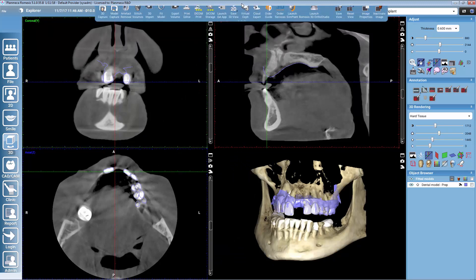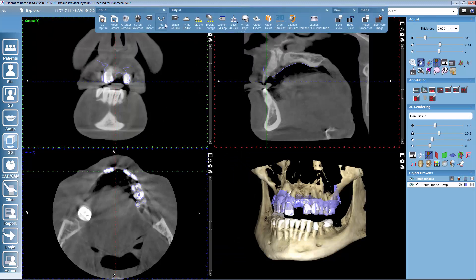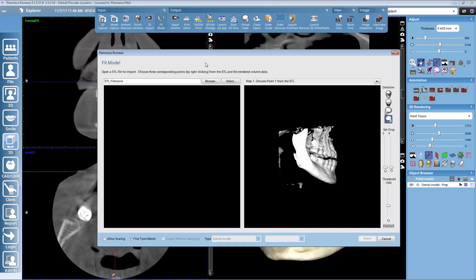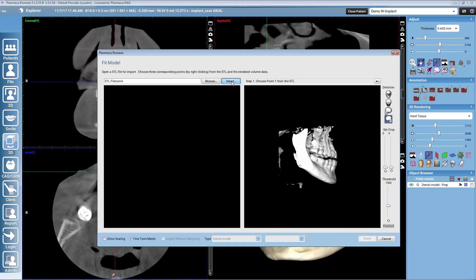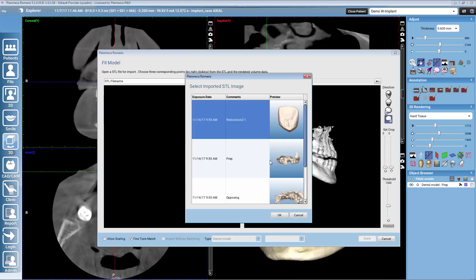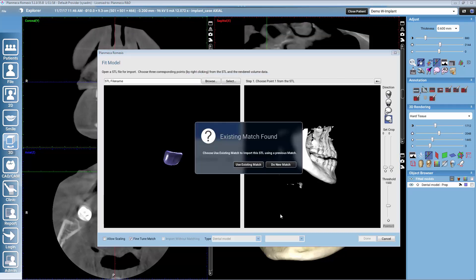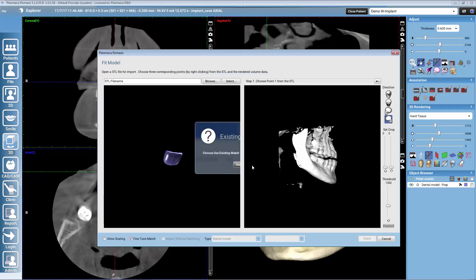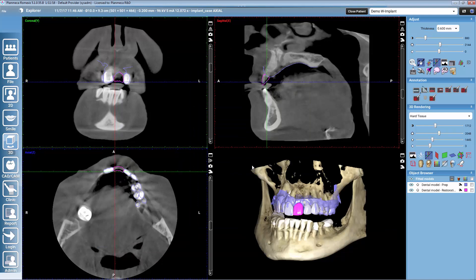If we have also made a restoration design already, we can match that to the volume as well with the same fit model tool. Romexis notices that this crown has been designed on top of the already matched intraoral scan, so the crown will drop automatically to the correct place.